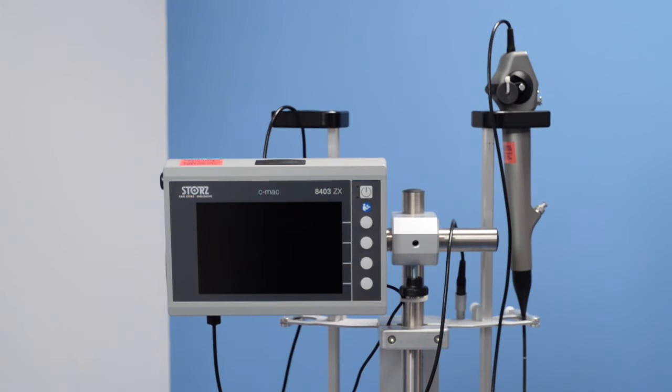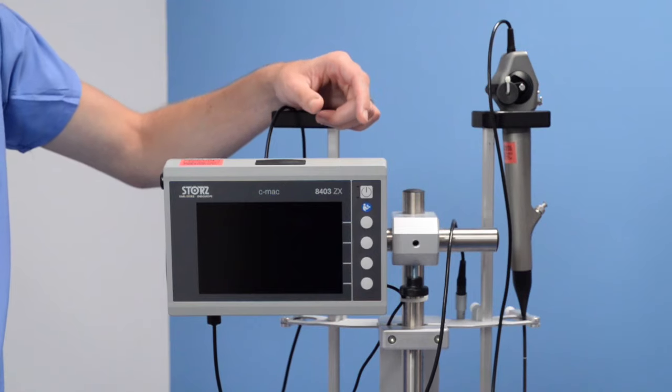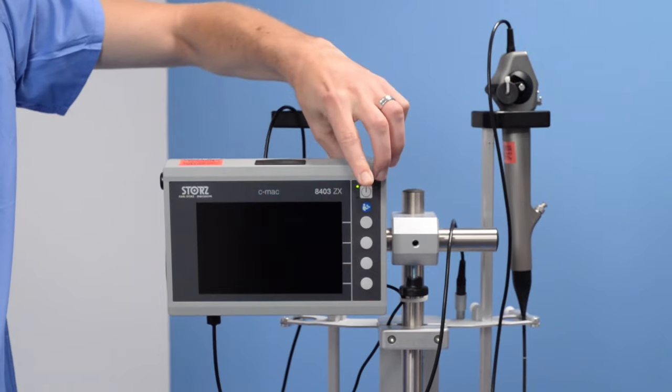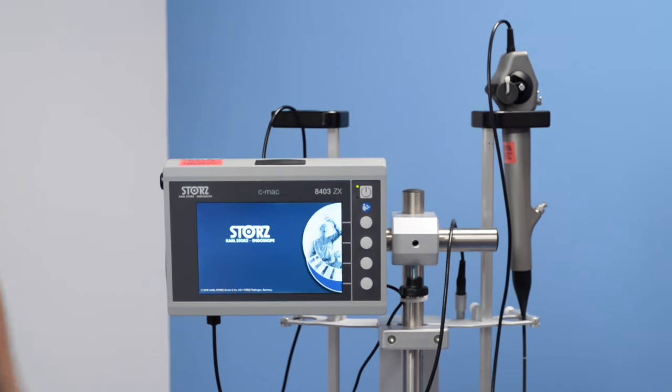To turn the scope on, press the button on this corner. It takes a few seconds to run up and be ready to use.